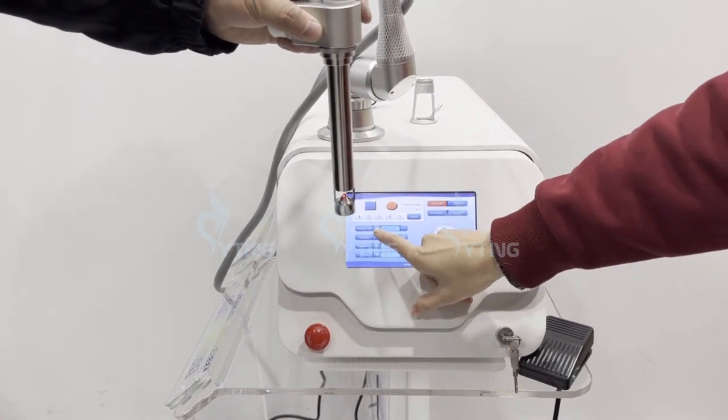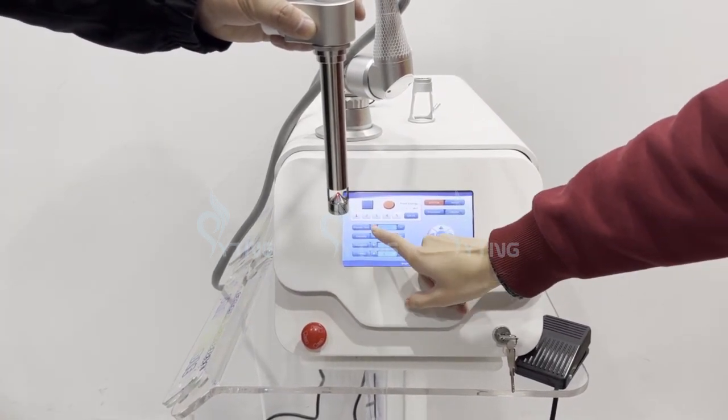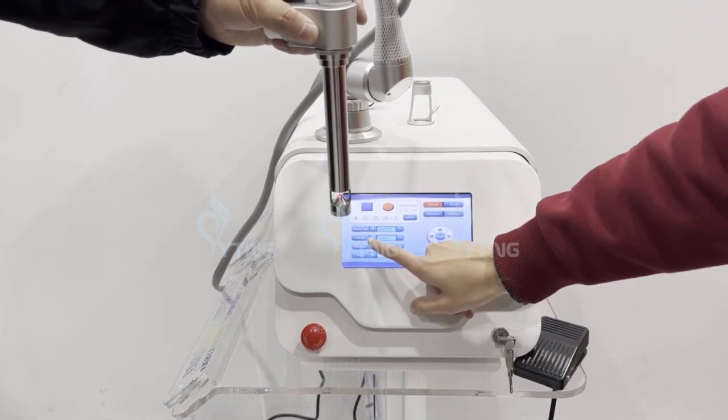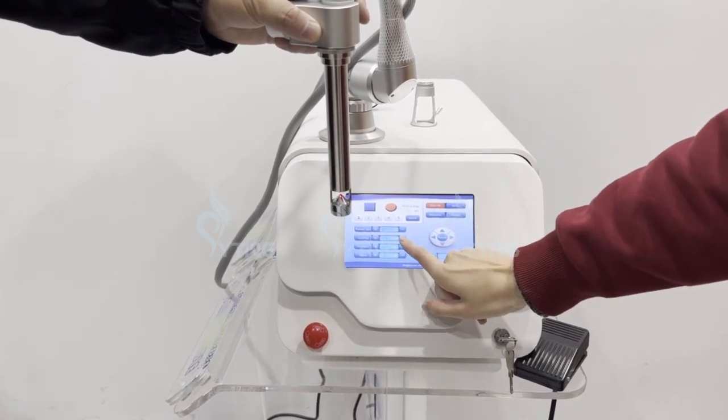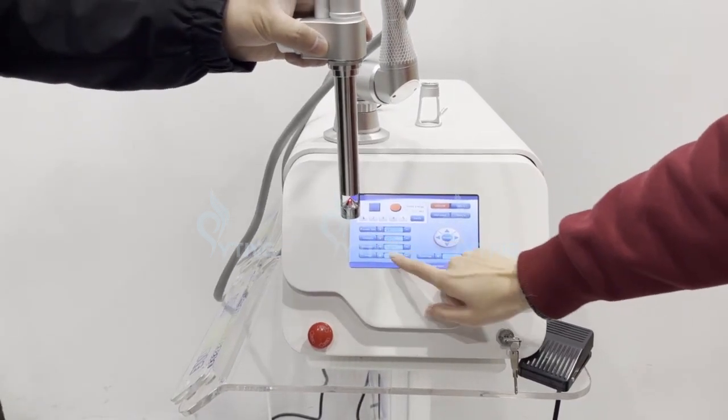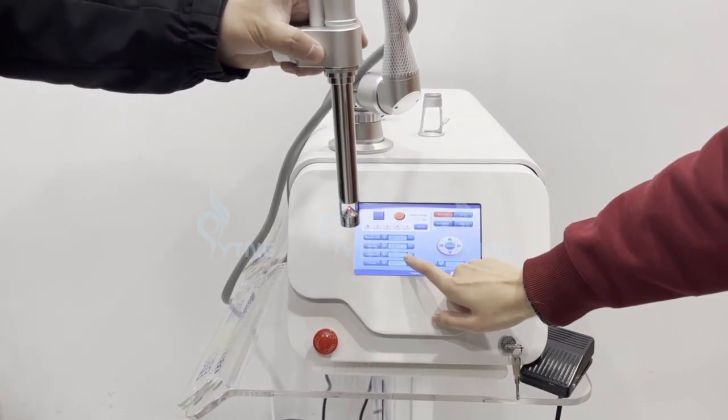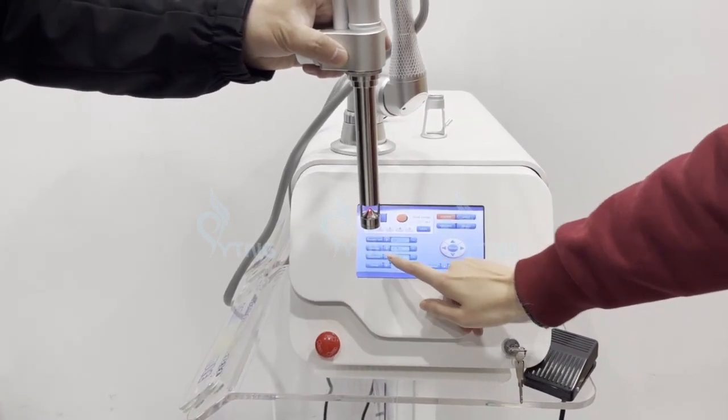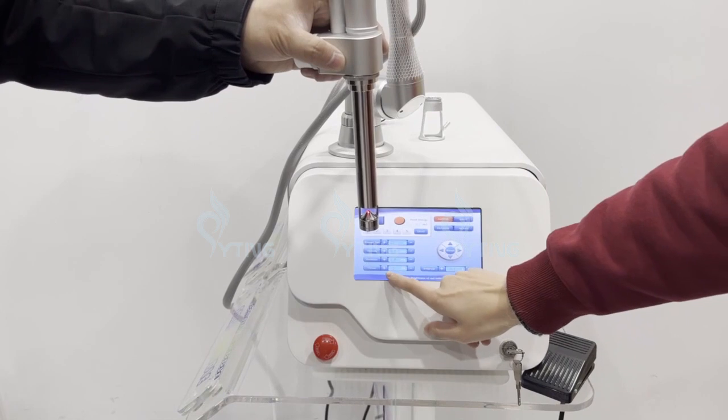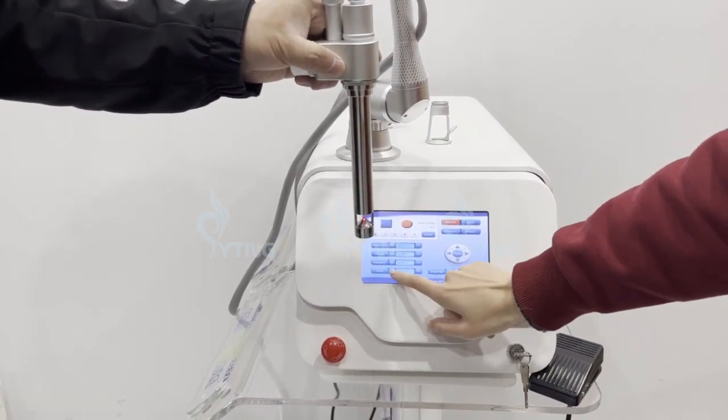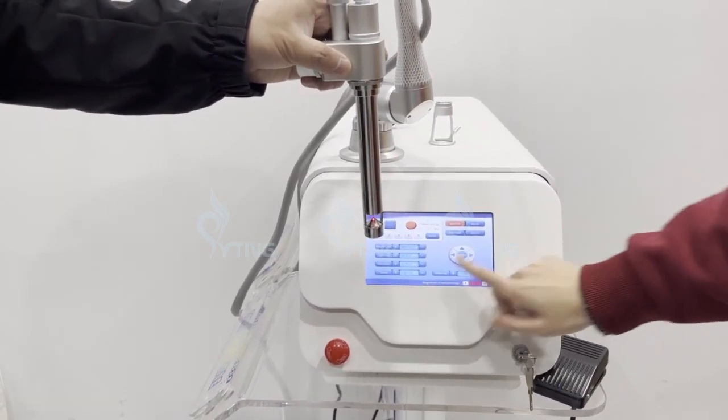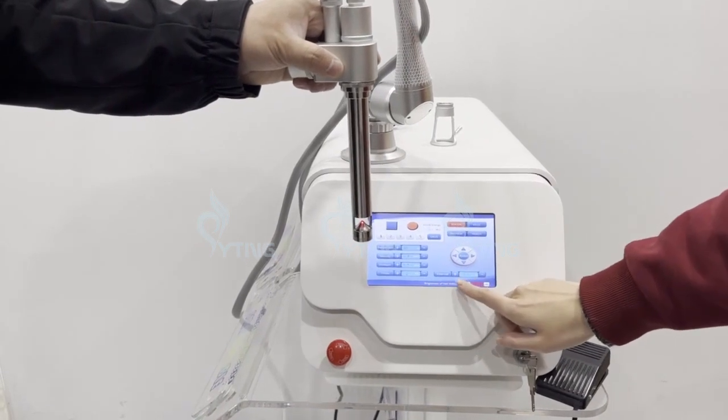Set the power, the density, and the duration. The times of one shot and the interval.